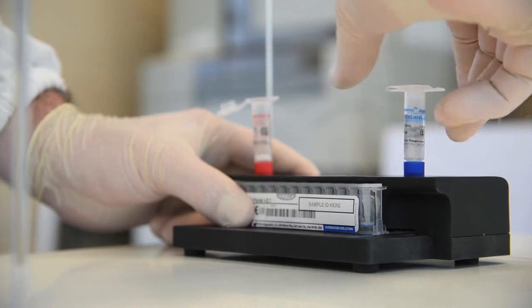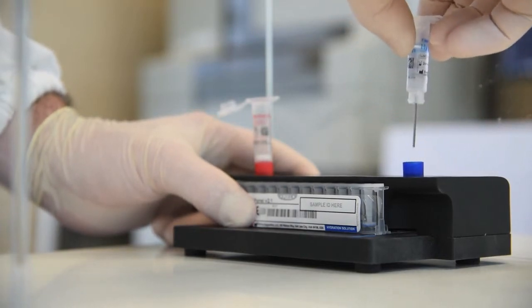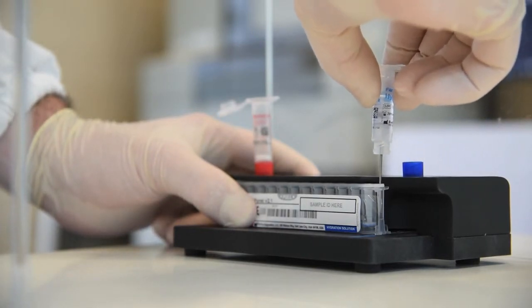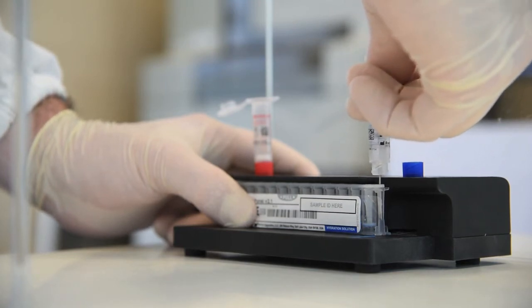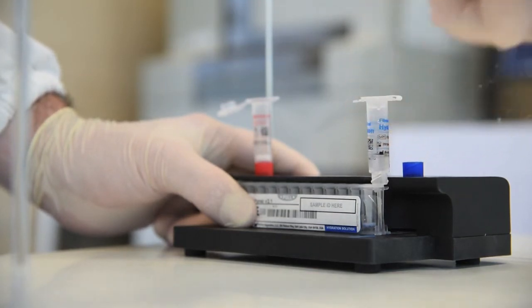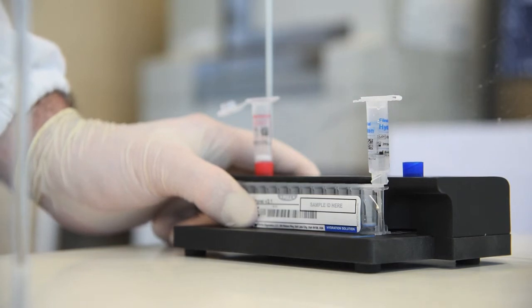Step 2, Hydrate pouch. Twist off hydration injection vial, leaving cap and pouch loading station, and insert into pouch hydration port. Forcefully push down to puncture seal. Wait as hydration solution is drawn into pouch.